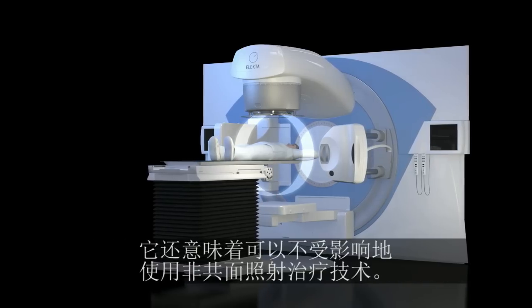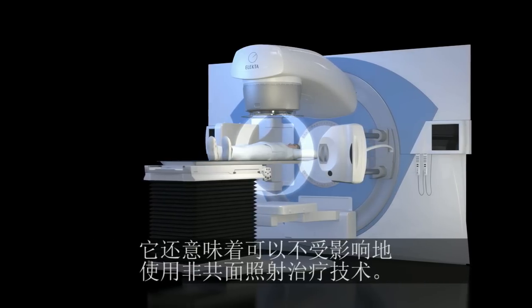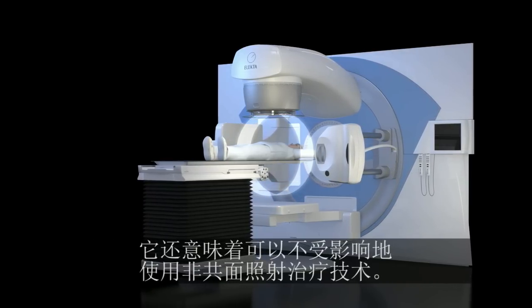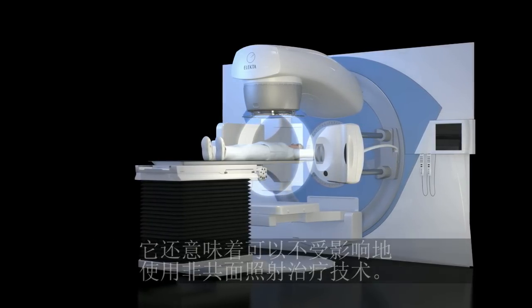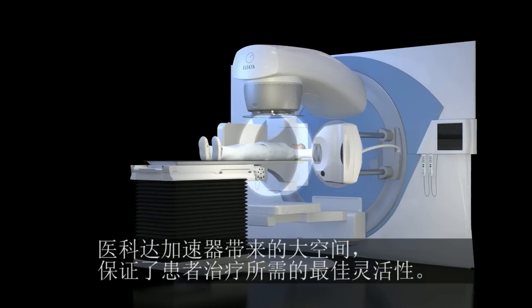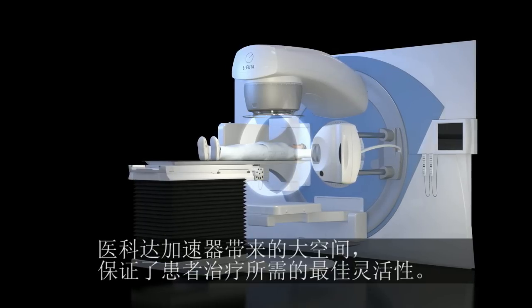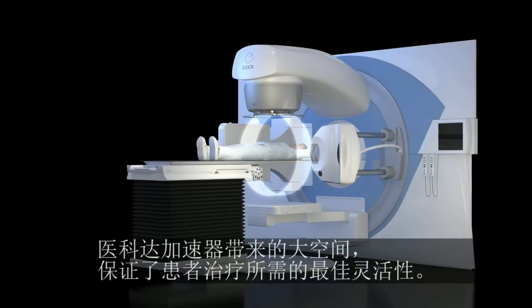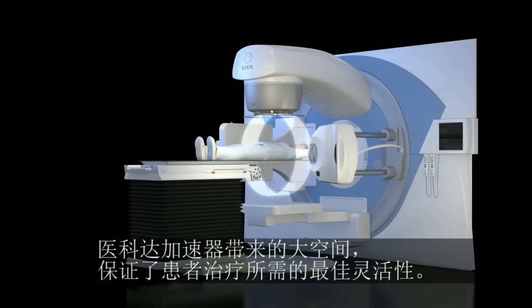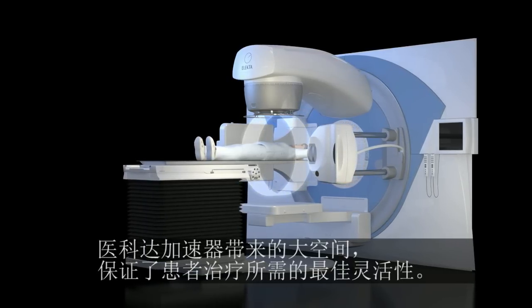Finally, it means that treatment techniques using non-coplanar beams are not compromised. The large clearance offered by Elekta machines ensures flexibility in providing the best possible treatment for the patient.